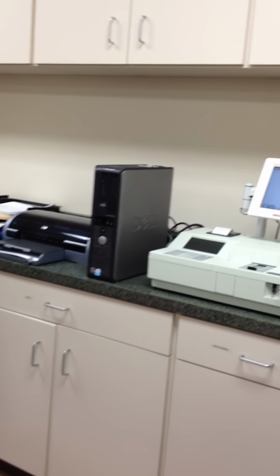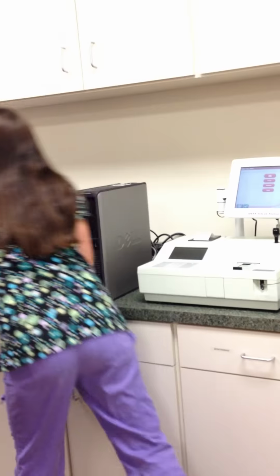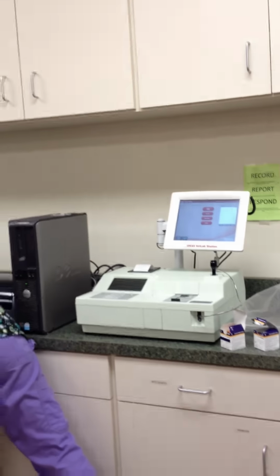Okay? Make sure that there is paper in your system before you press enter, because if there's not, then again, it gets mad and yells at you. Okay? And there's paper in one of these drawers. Yeah, I believe it's this one here. Yep, there's paper here. If the machine runs out of paper, let us know.